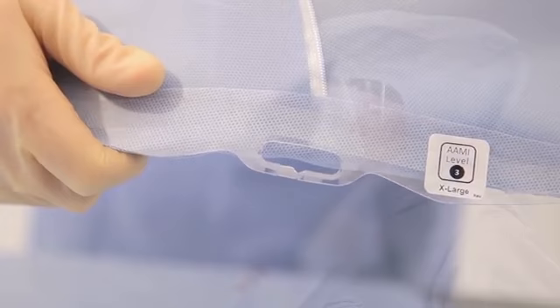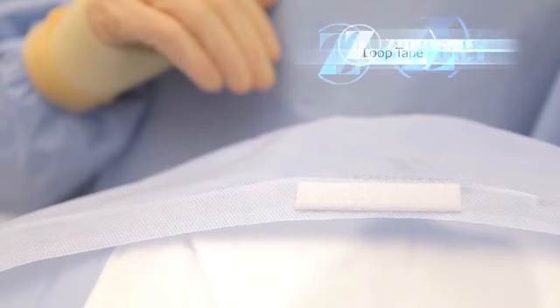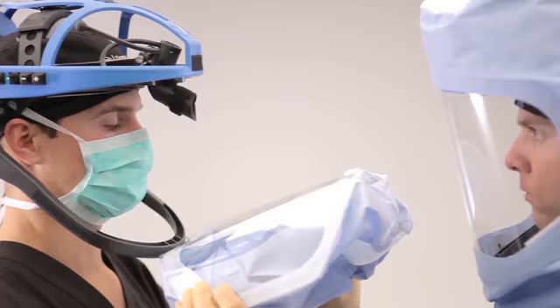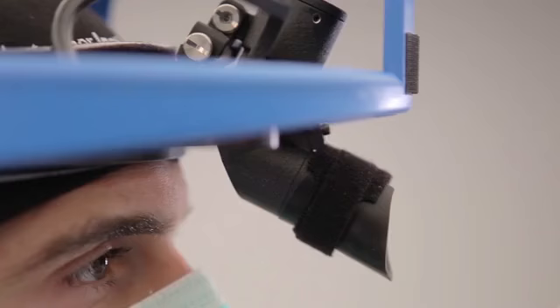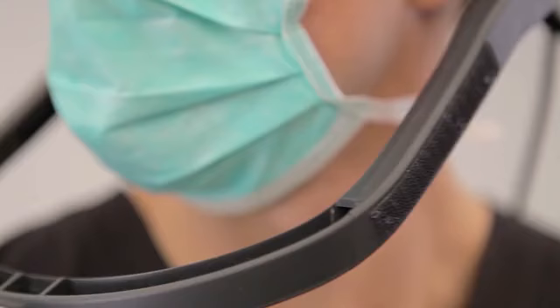For the assisted donning of the system, grasp the toga on either side of the shield and hook the tab into the slot on the helmet chin bar. Notice the loop tape that is located on the top of the toga shield. Position the loop tape against the central portion of the helmet so that it adheres to the hook tape located within the front of the helmet. Curve the toga shield around and firmly press the hook and loop tape located on each side of the face shield to the mating hook and loop on the respective sides of the helmet chin bar.